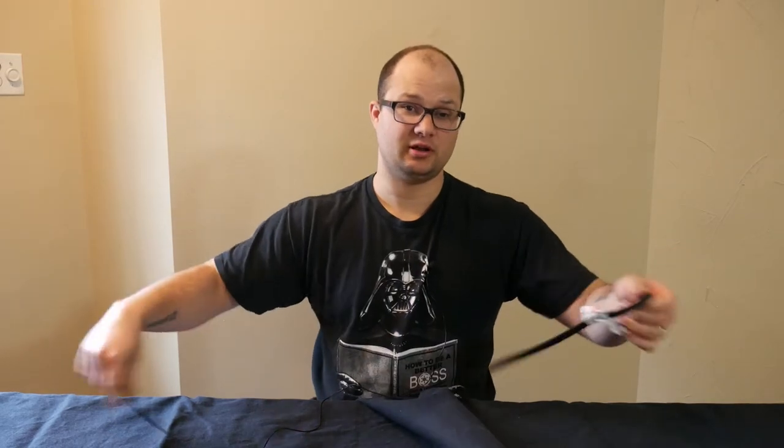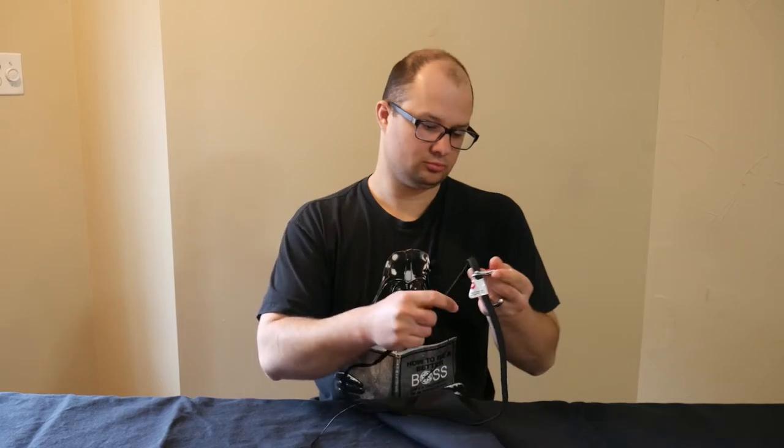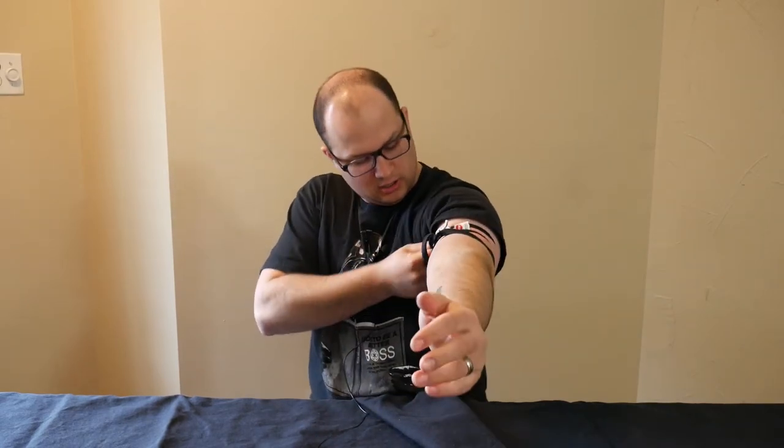For those of you who don't know how to put on a RAT's tourniquet, this part goes through this loop. If I ask you to put on your RAT's tourniquet right now — I'm going to pull up my shirt here so you can see this — pause this video and put your RAT's tourniquet on, then we're going to compare notes. So when you apply it, you're going to crank that sucker hard, then work it through that cleat in order to stop it.